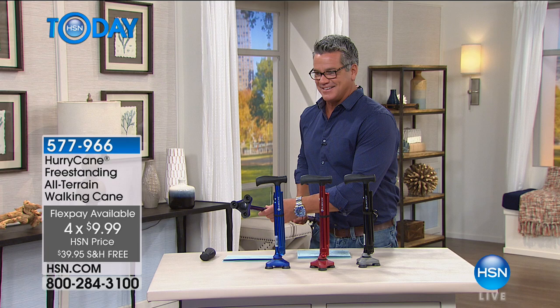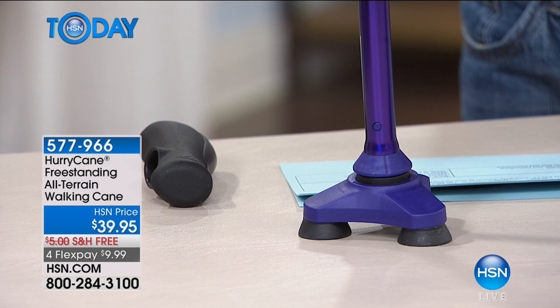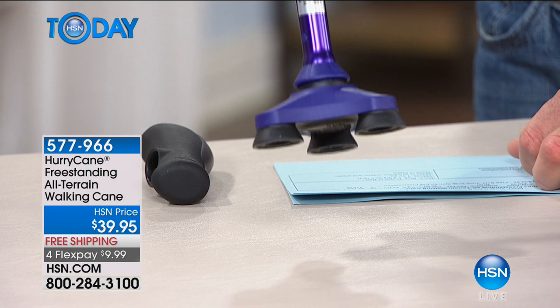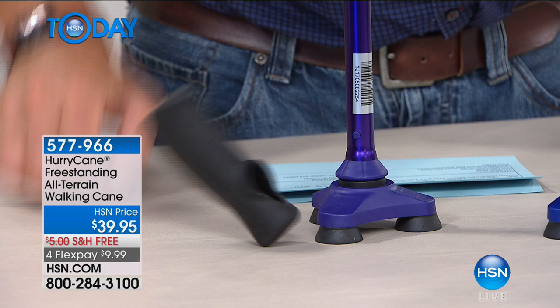So you can get a good tight shot of it. These are all rubberized like little cups on the bottom. What happens when this hits the ground is it'll walk. And it doesn't matter what direction you're in — the handle spins up top, and it actually walks and lifts heel to toe, like a shoe. It's rubberized versus just a regular cane, which basically won't even stand up on its own.